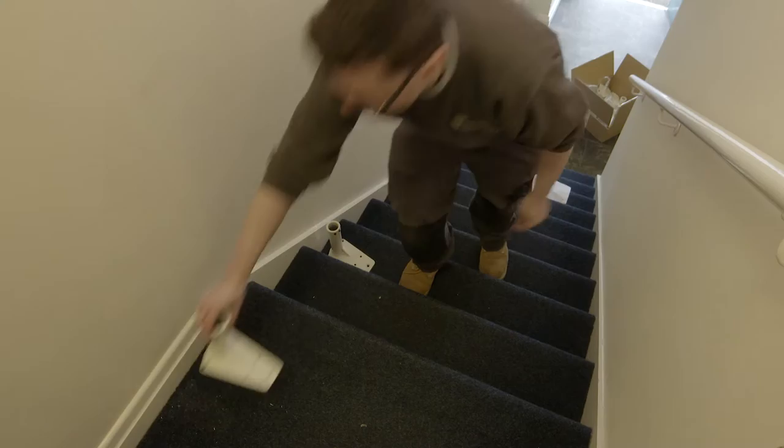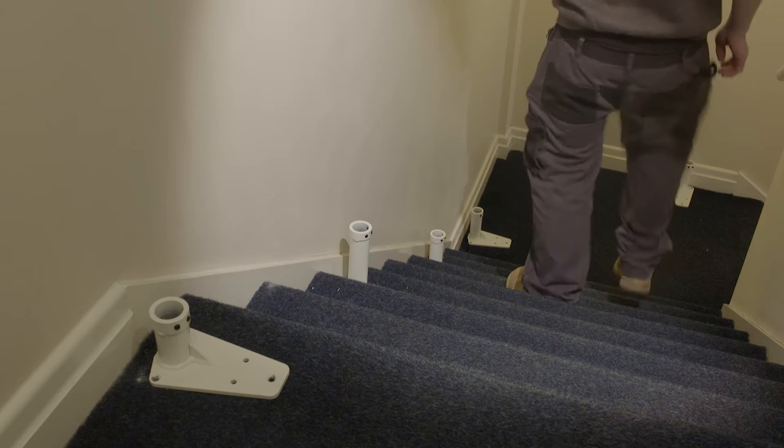When unpacking the rails and bases, take care not to damage the paintwork. Organize the bases with the tags provided, starting with one at the foot of the stair. Clarify with the customer any existing wires or pipework, so no damage is caused when installing the stairlift.